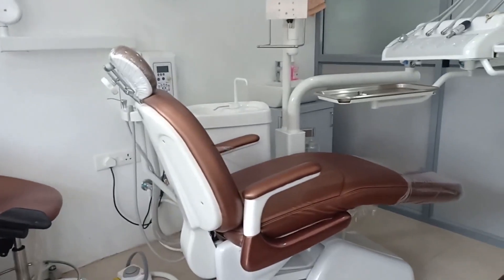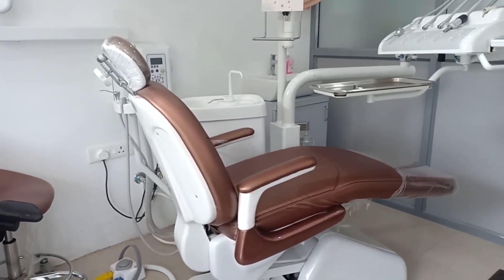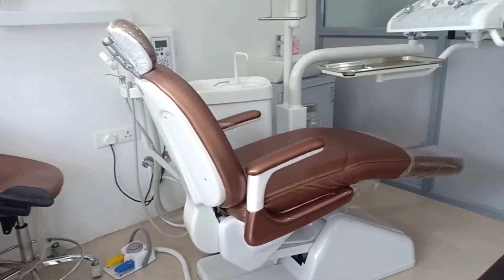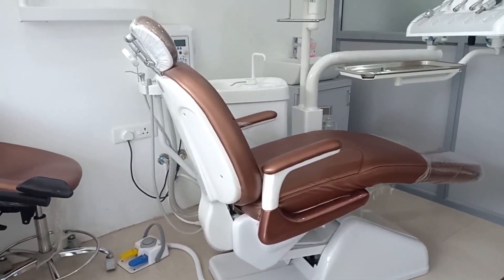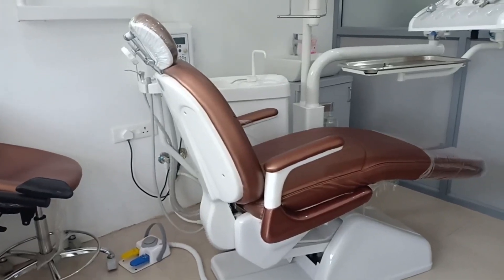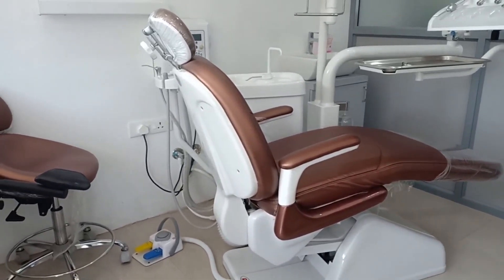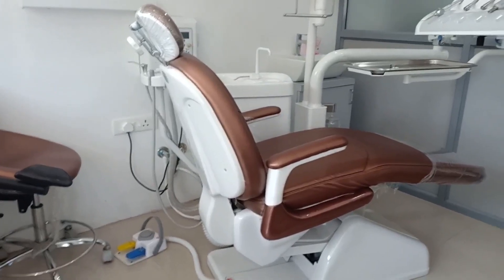Hello everyone, welcome back to a new video on 'Dentistry and More.' Today we have a demonstration of a dental chair. It is mainly for dental students in the early years, like first year and second year, and it might be helpful for common people too. Let me explain part by part of a dental chair.